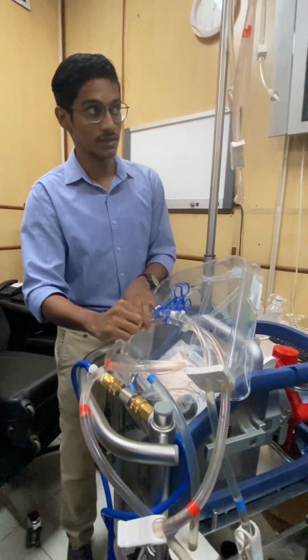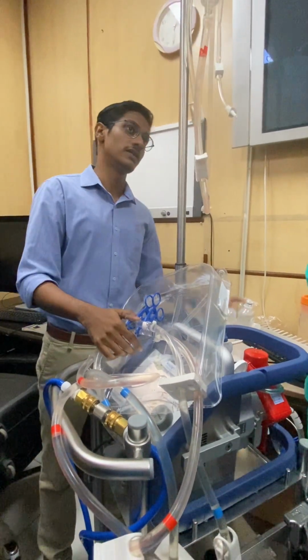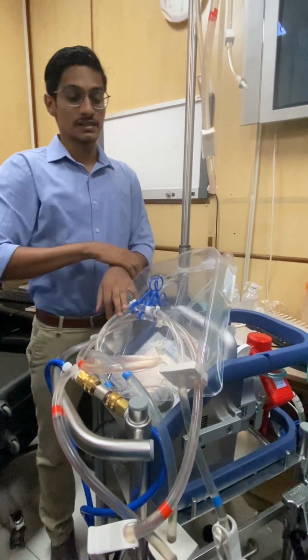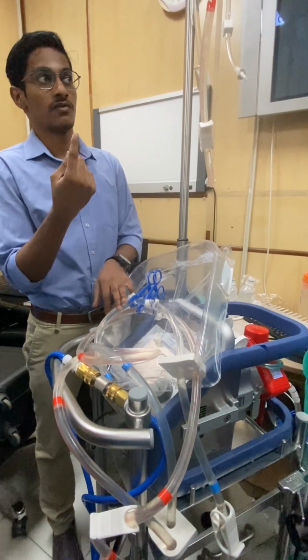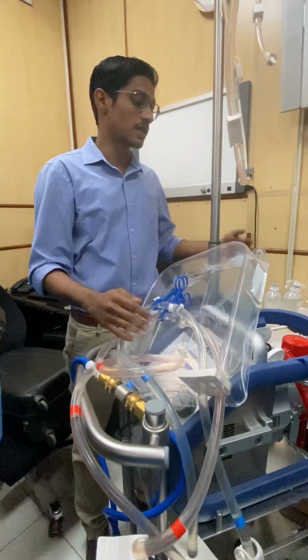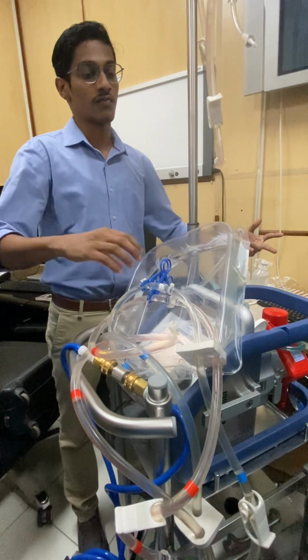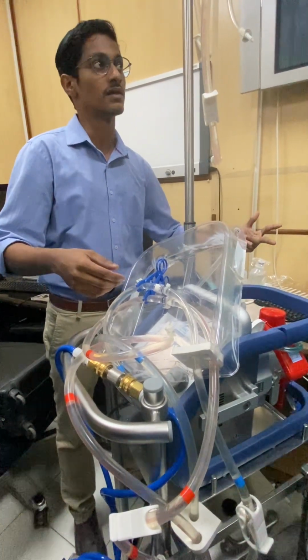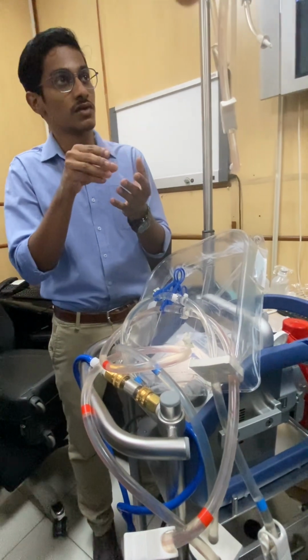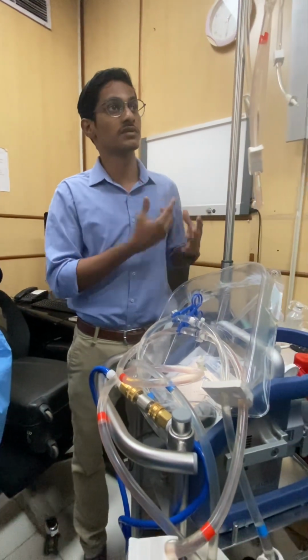Now one thing to note here is why 1500 to 1600 is important. I said first we will take venous, we will increase to 1500, 1600, only then take the arterial. As I said, this is just a rotor. Whichever side has more pressure, it will rotate to that side. So if you directly take the arterial while the pump is not running, or the RPM is less than 1000, or at 800 or 1200, it will be rotating very slowly. There is a very good chance that the arterial pressure will dominate this.